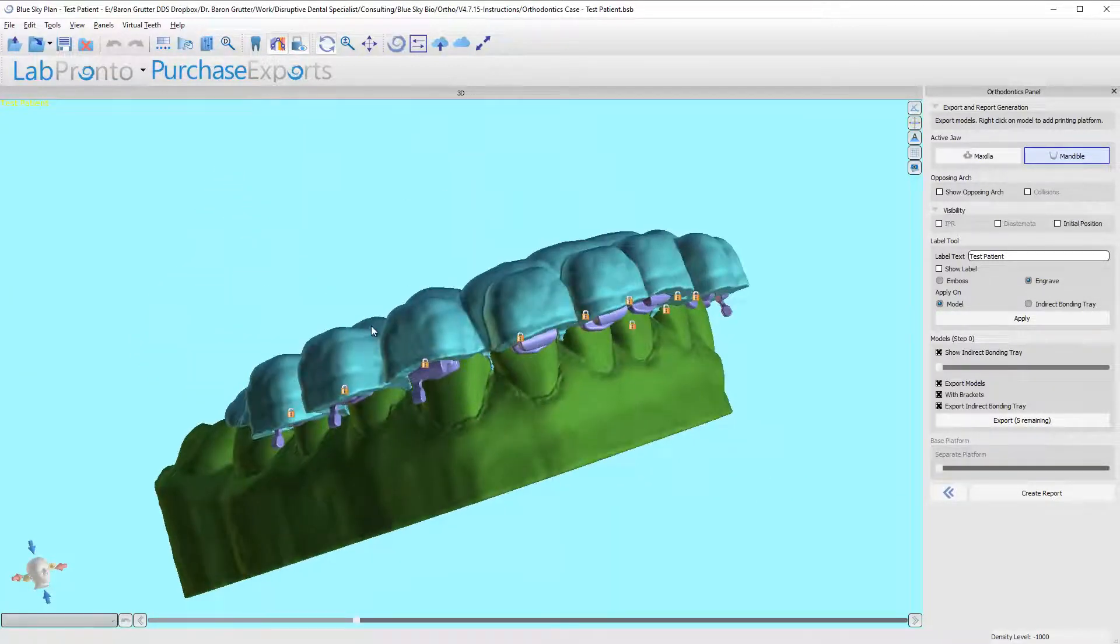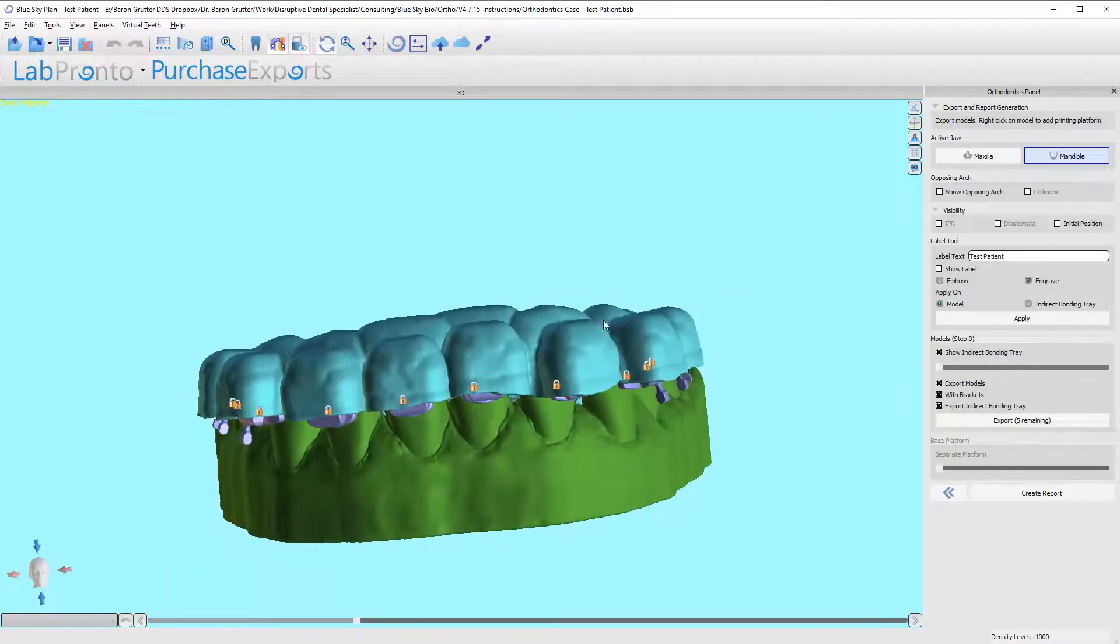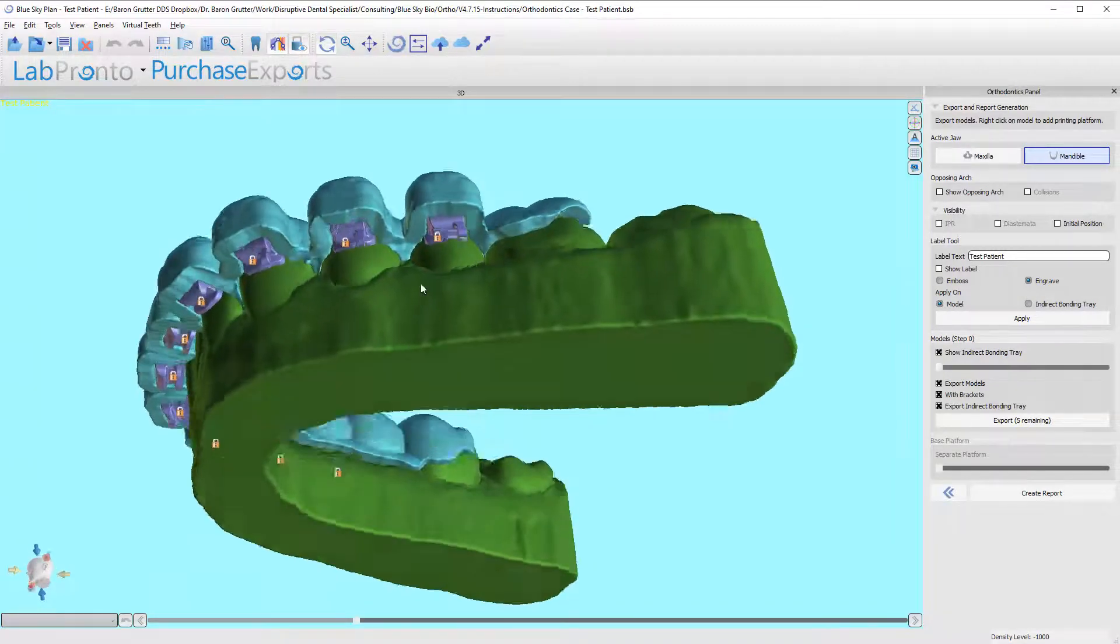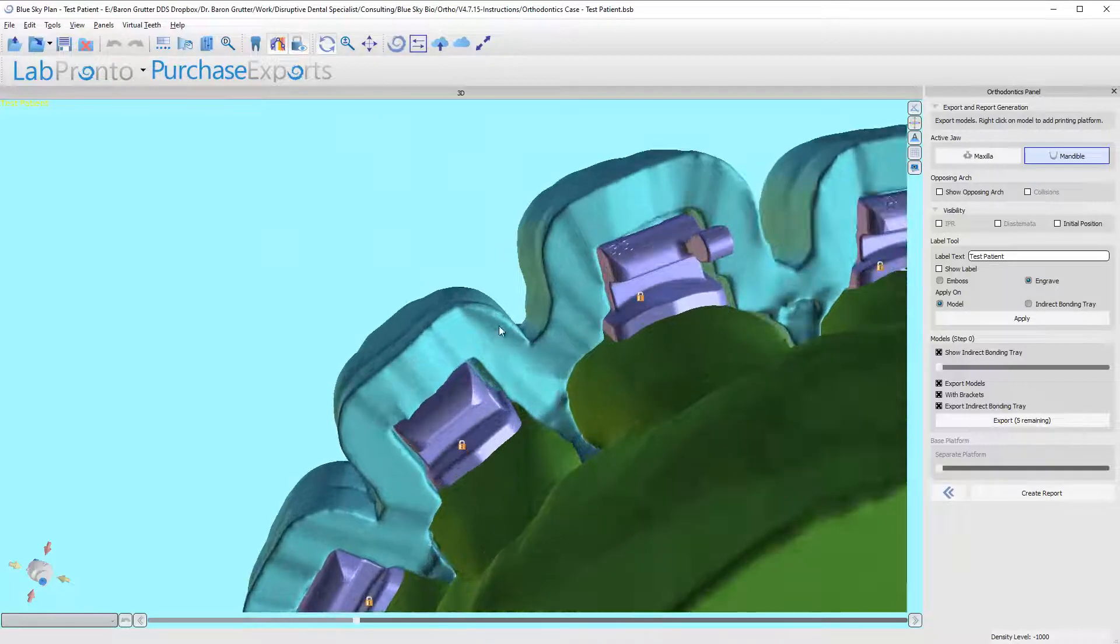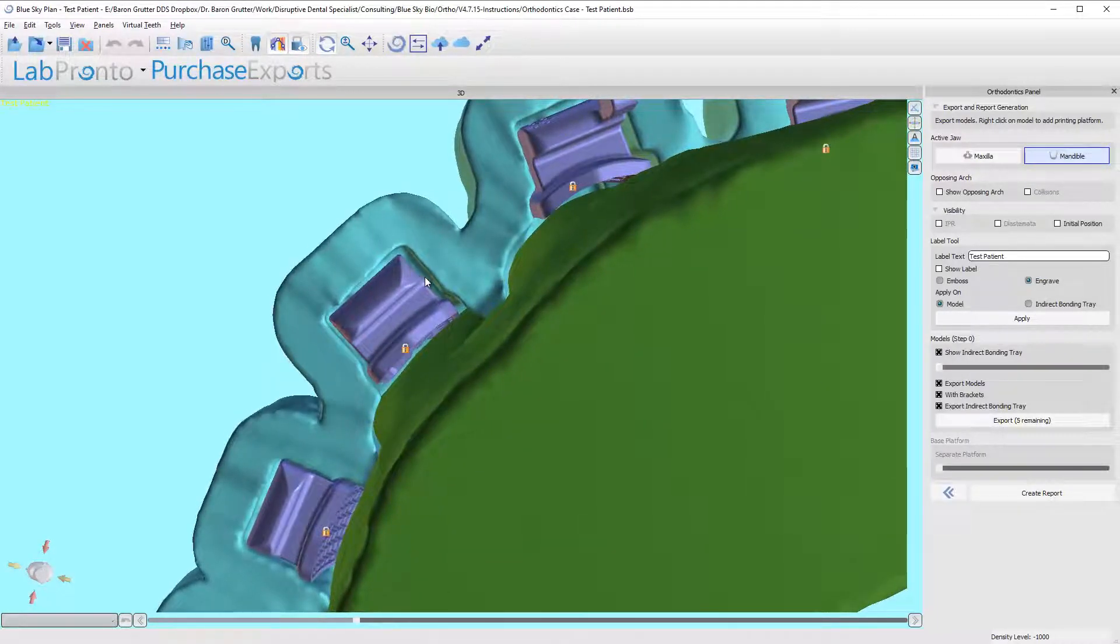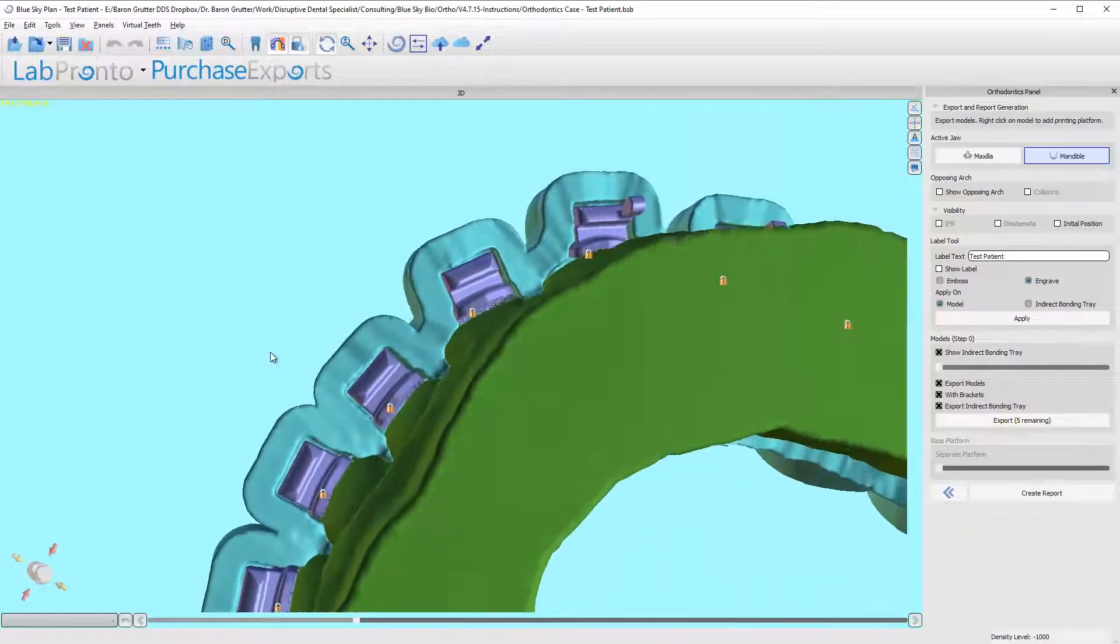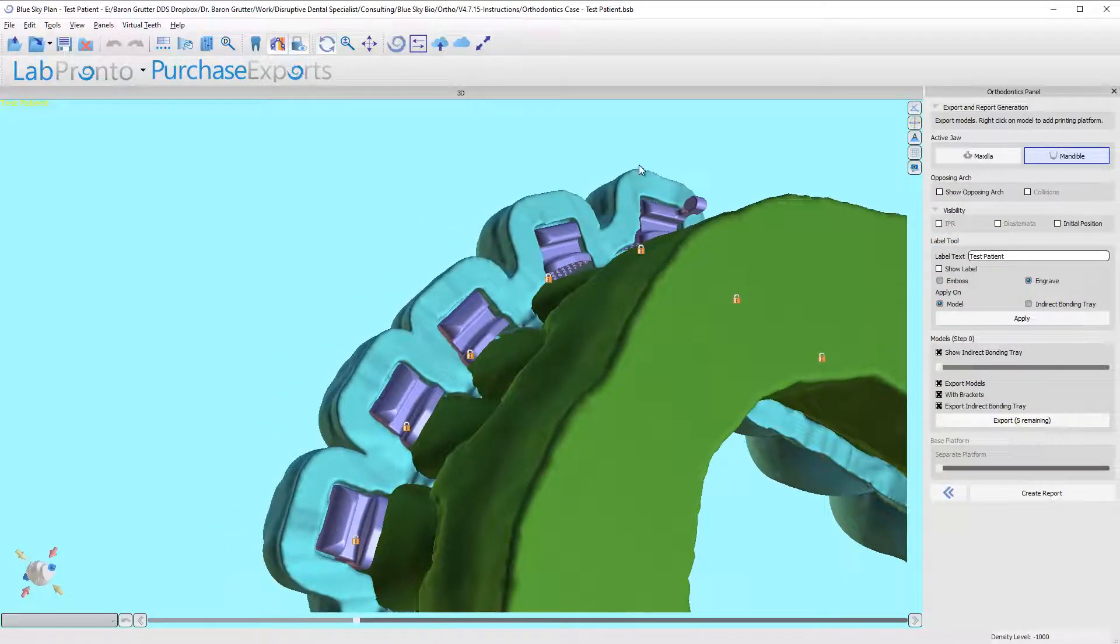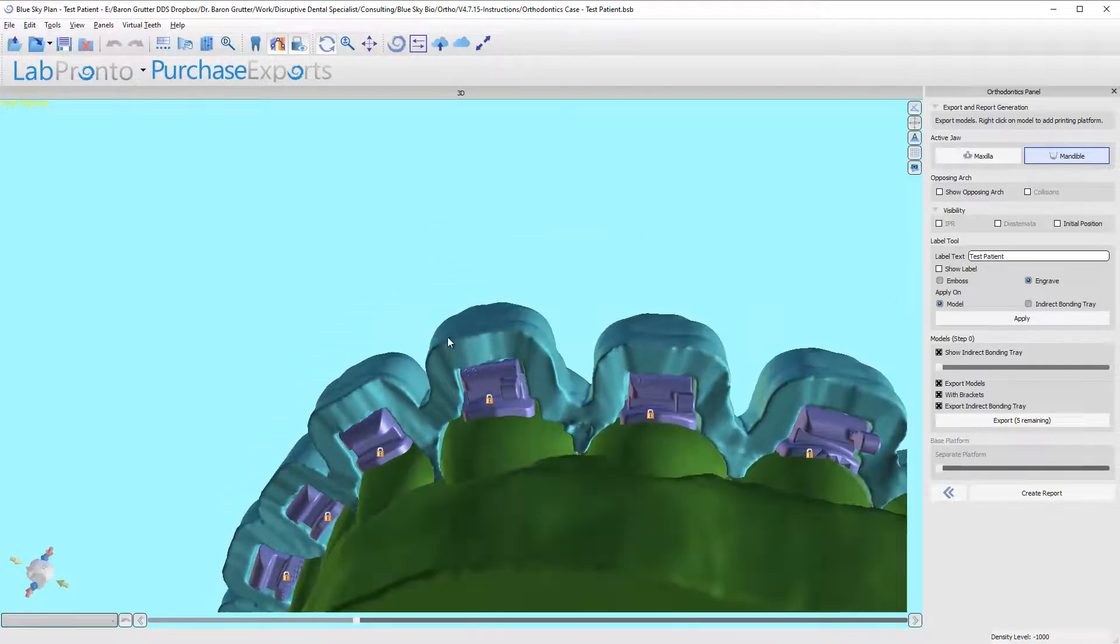You can see that the way I designed the tray, the brackets just barely stick out. This should be more than enough adhesion for the brackets themselves. Now I want you to pay close attention here—there's a space surrounding all of these brackets. That's the whole idea for passive fit. Now if you think they're too loose, you do have an option to tighten that down.